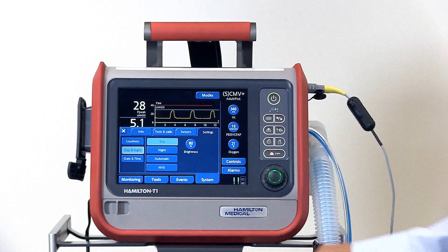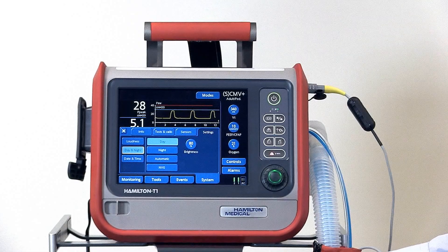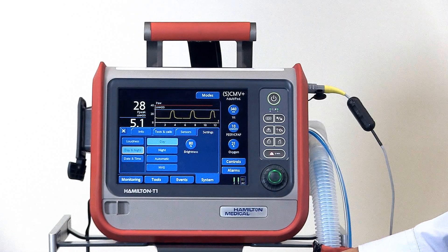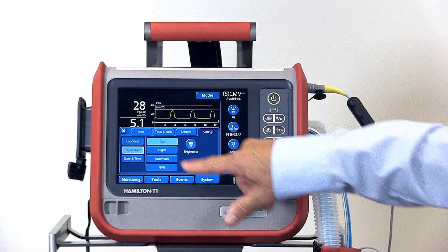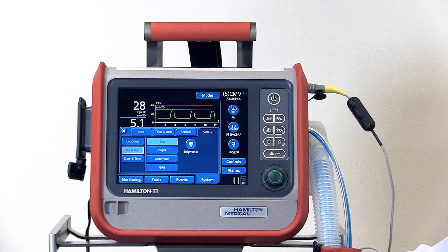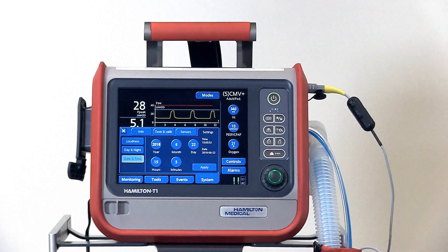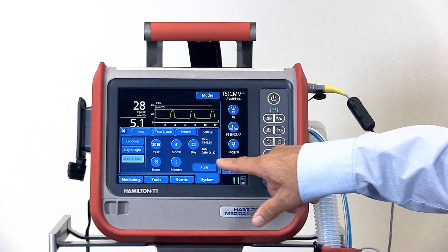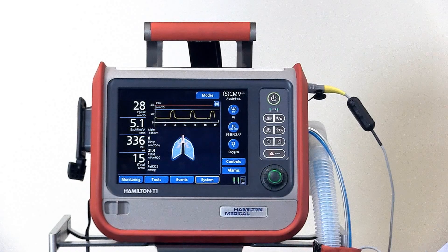Below that is the day and night adjustment, where you can adjust the screen brightness and the alarm lamp brightness for daytime and nighttime settings. Or you can set the screen to adjust automatically in relation to ambient light. The next tab down is where you may adjust the date and time. We can close that window by touching System again.